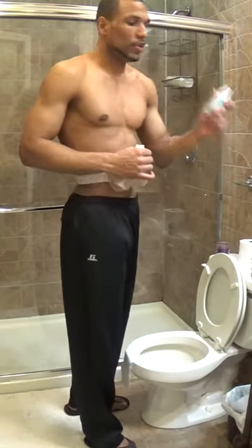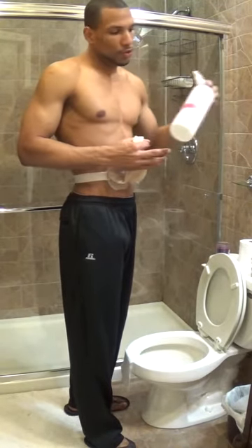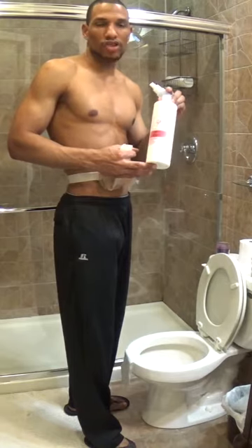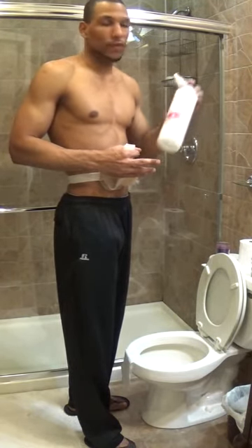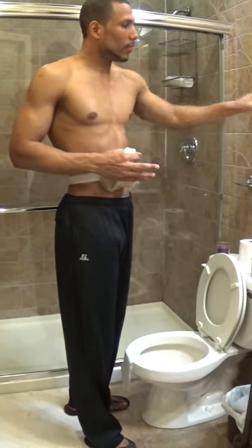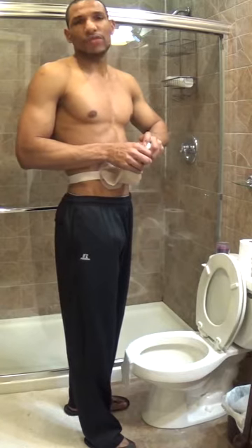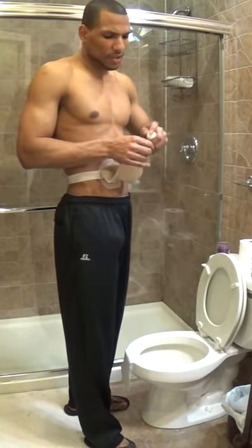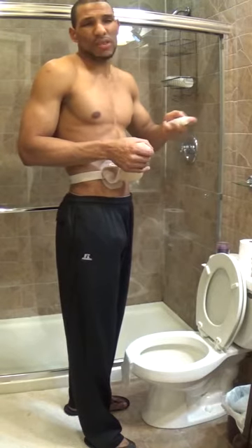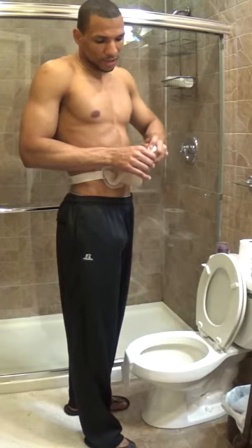Now you're going to spray a lubricating deodorant to make it smell better — this will also help you clean your bag. It's a lubricating deodorant that I use by Empower Your Change; you can find it on their website. I'll leave the description and link down below for further information. I usually squirt about 7 squirts in there — I might do a little bit more if the bag has been doing a lot of work.